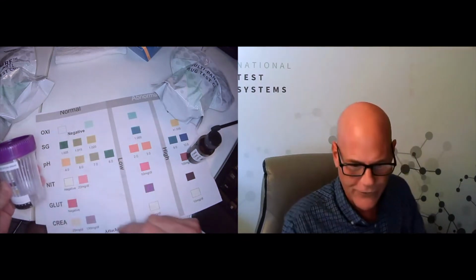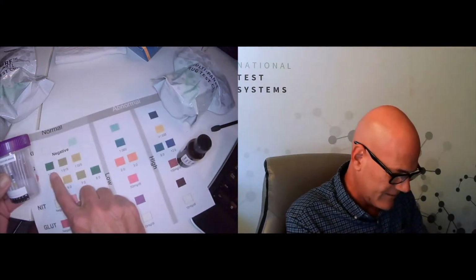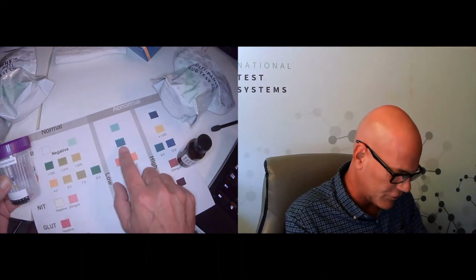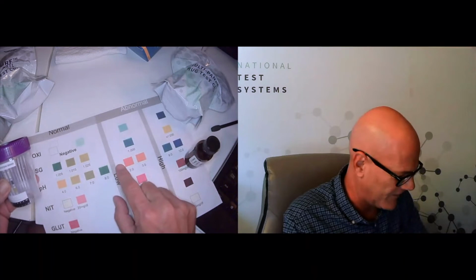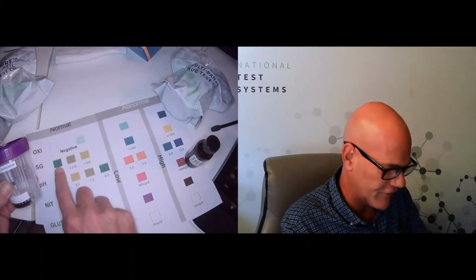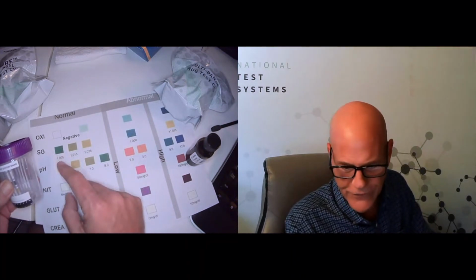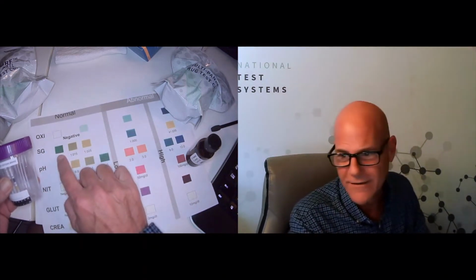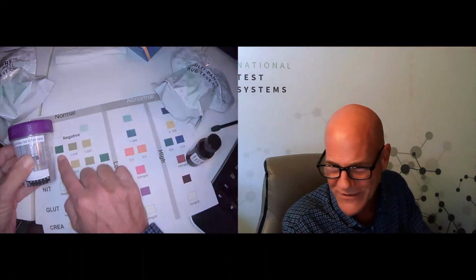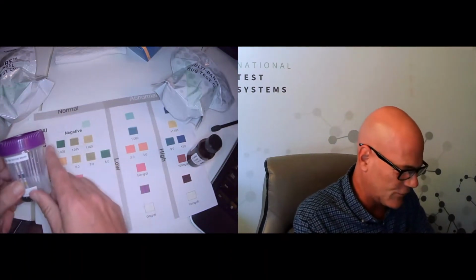Next, we move on to our specific gravity. It starts green. If it gets below that, it turns blue, and then it turns gold. If it gets above that, it turns super gold. It's probably not even a real color. And we can see we're still pretty dark green here. Not quite there, but around here probably. And if we look at our chart, we see that specific gravity is 1.005. So yeah, we're close. It's right around this color here. And again, you can almost tell. I mean, camera's not too bad. Thanks for modern technology.